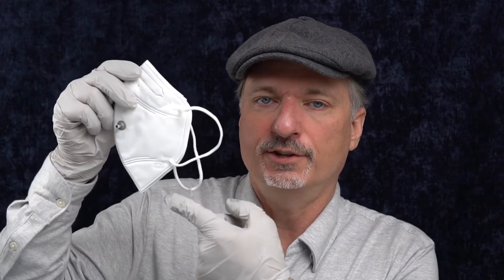A little warning ahead of time: small bifold masks aren't the ones that fit me the best, so I don't know how these are going to work because they're kind of short, and I generally like more under the chin. But we will also use Fix the Mask to see how they filter, as well as how they fit without that.